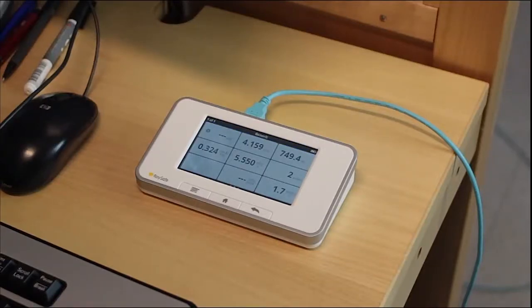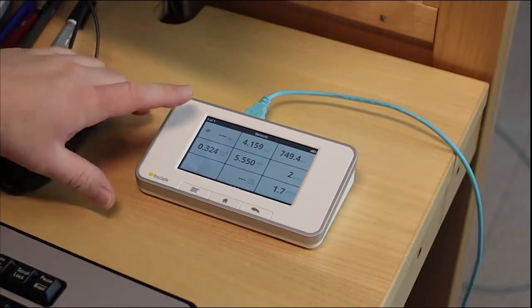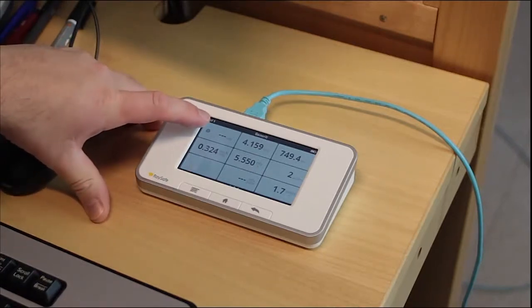Here we get correct dose and time measurements without settings, but as you can see we don't get a KV value.